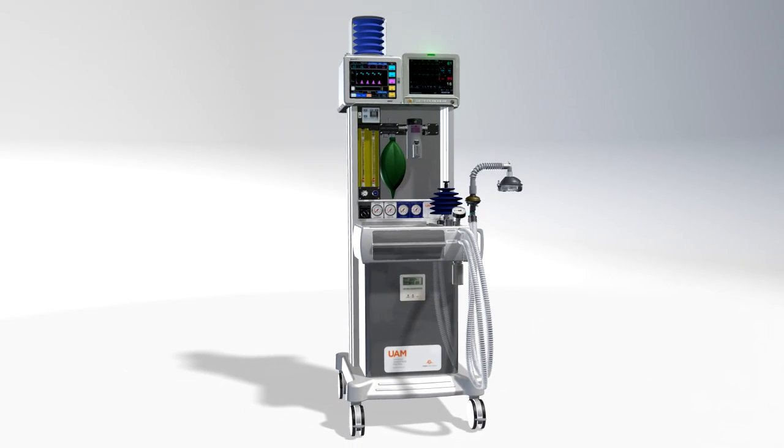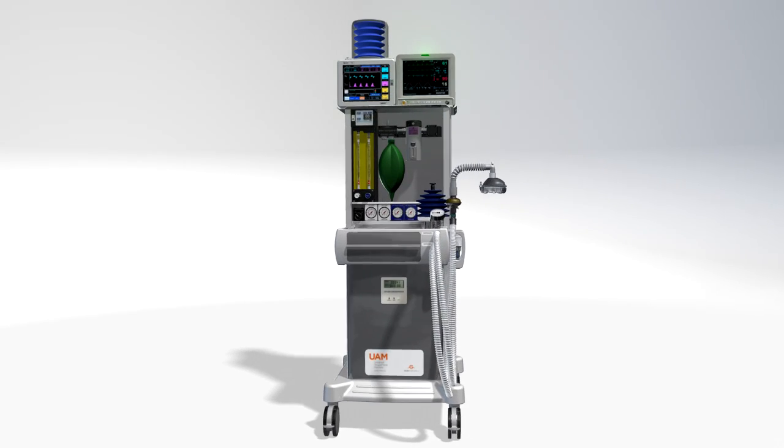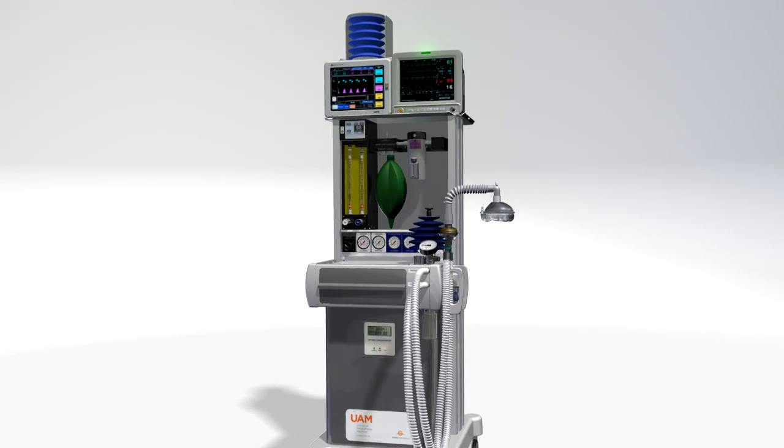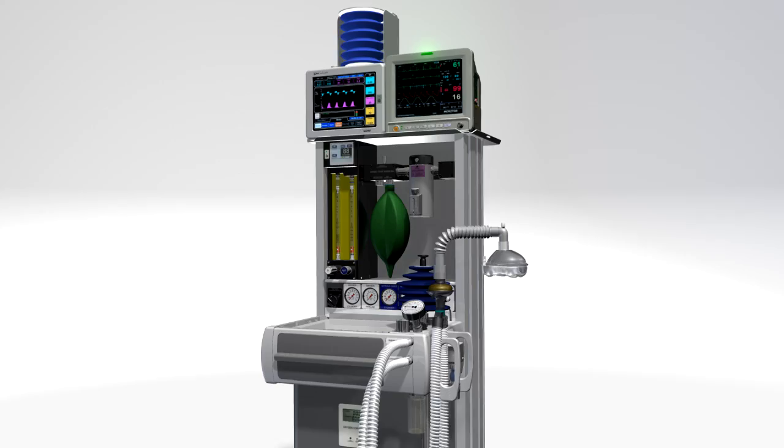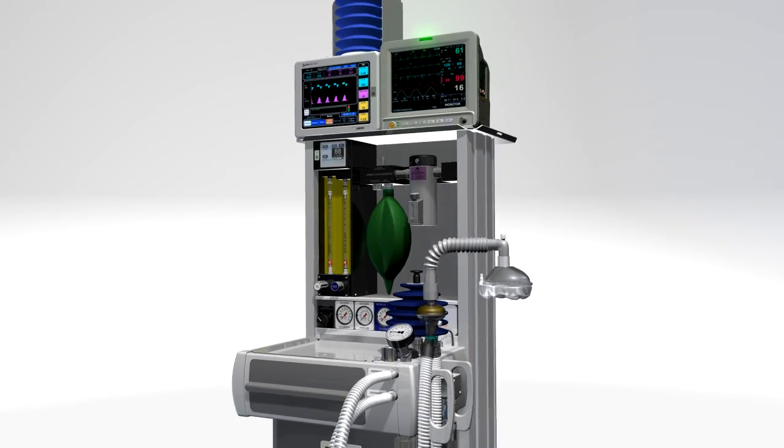The Universal Anesthesia Machine ensures that an adequate supply of oxygen and anesthesia is always available to meet patient demand, no matter what the environment.